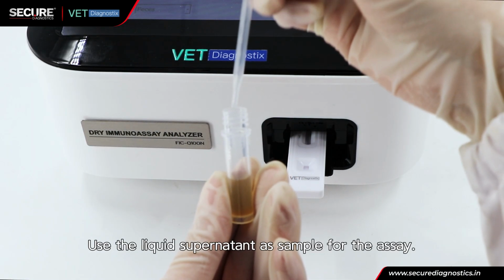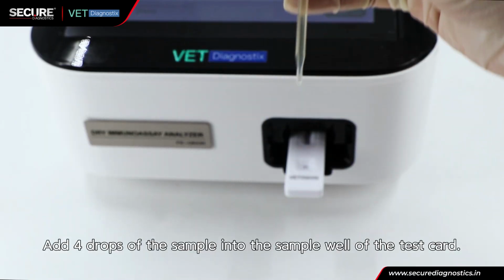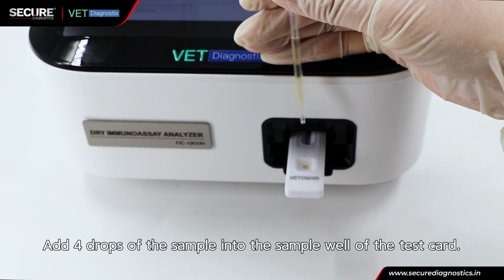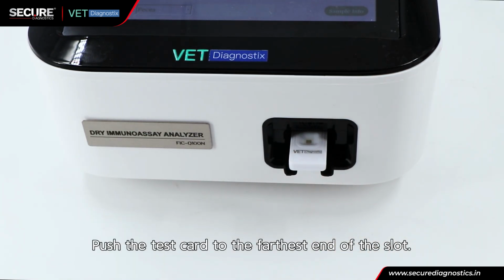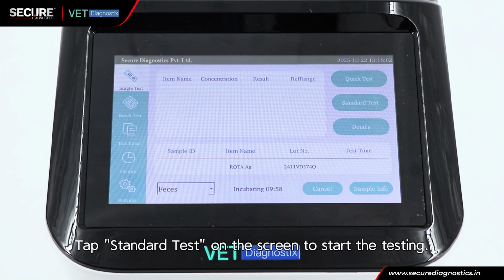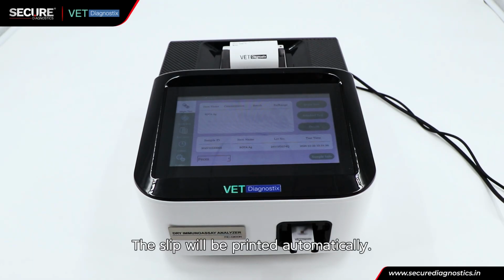Use the liquid supernatant as sample for the assay. Add 4 drops of the sample into the sample well of the test card. Push the test card to the farthest end of the slot. Tap Standard Test on the screen to start the testing. The slip will be printed automatically.